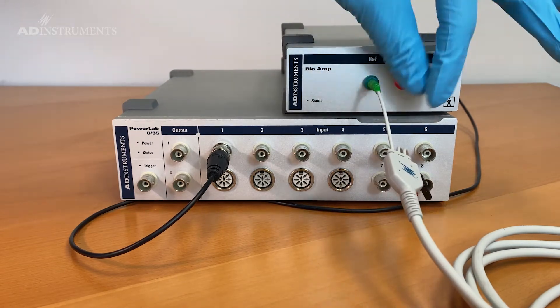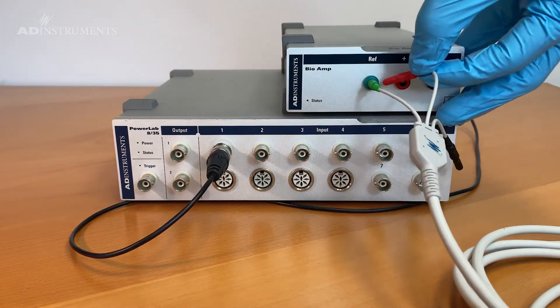Plug in the lead wires which will be used to record the biopotential signal from either human or animal.